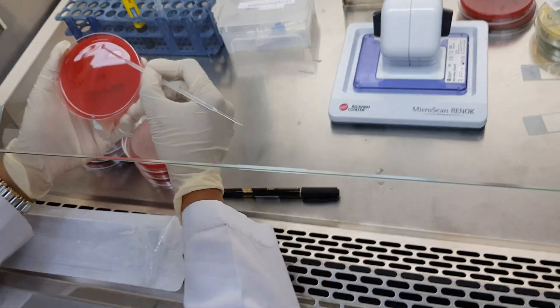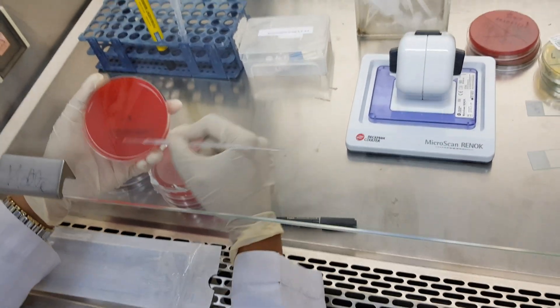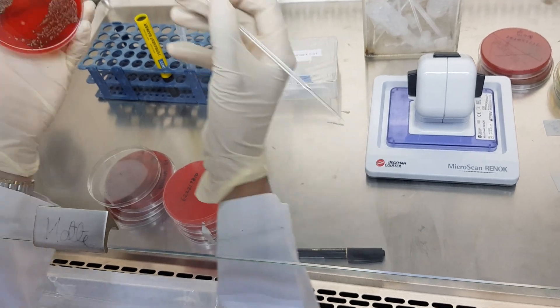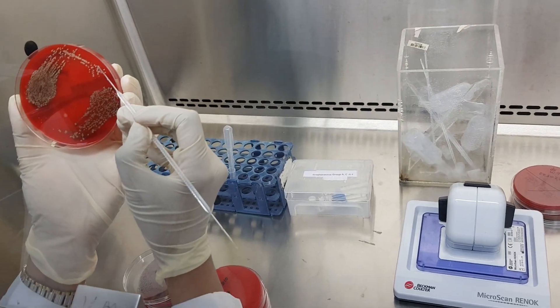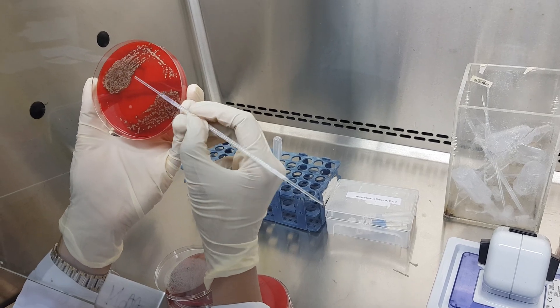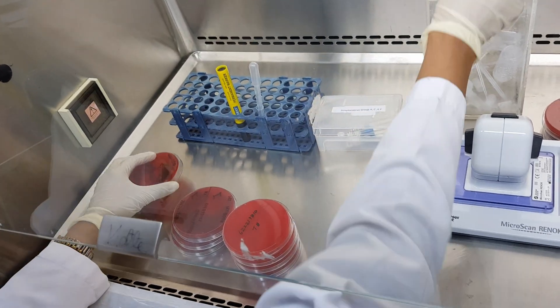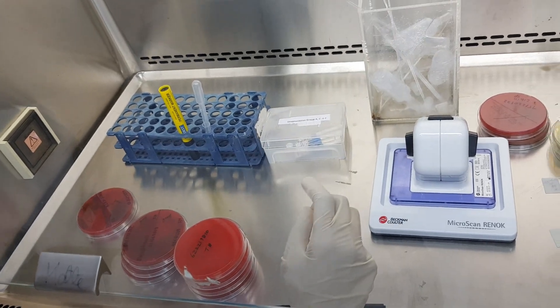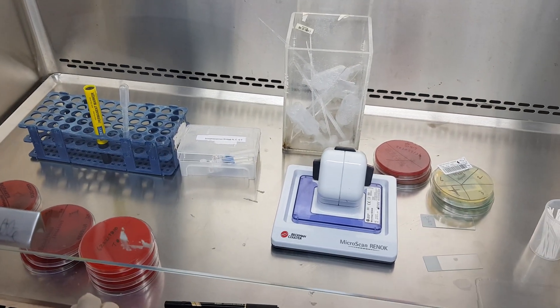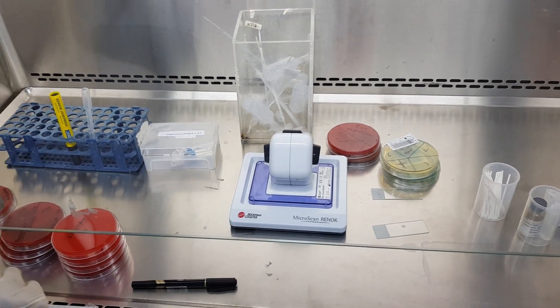All the throat swabs cultured with significant growth of beta-hemolytic streptococci are also prepared for antibiotic sensitivity tests using the disc diffusion or the Kirby-Bauer method. In this method, a single colony is picked from the growth and a lawn is inoculated onto a single blood agar plate by spreading the bacteria evenly and perpendicularly to cover the whole plate with a sterile swab.